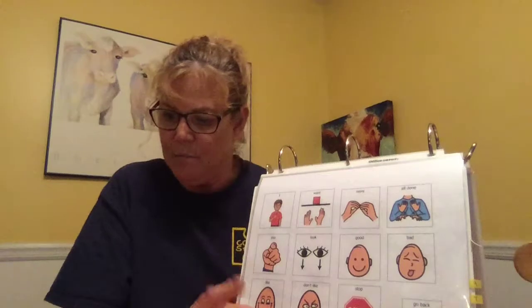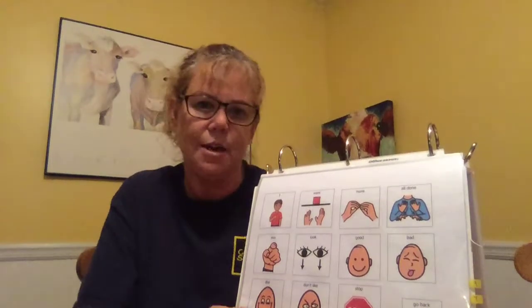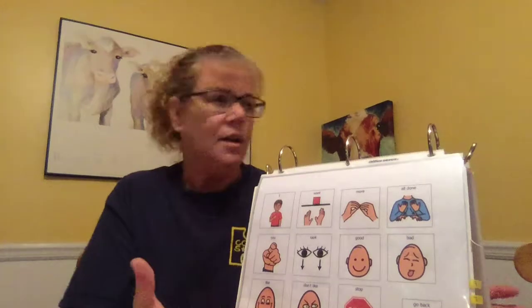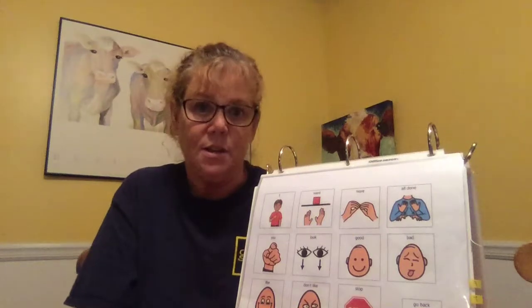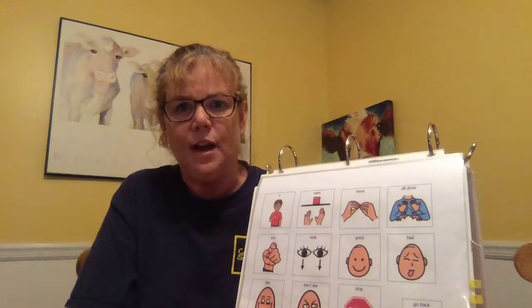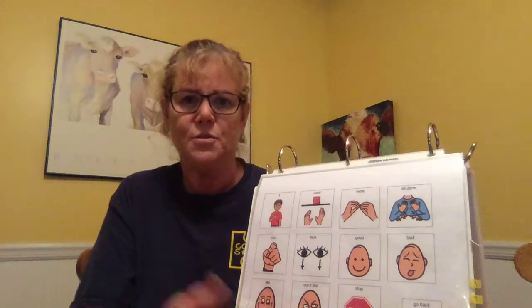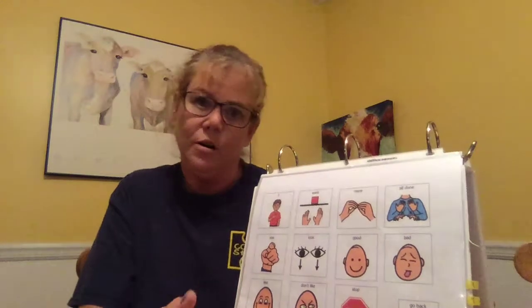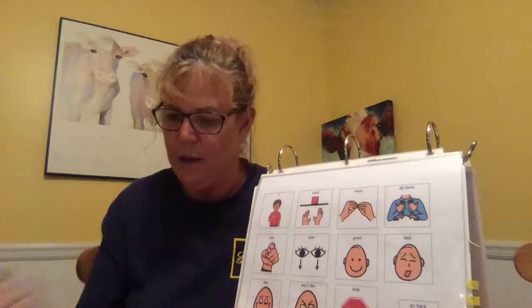John's previous system used a head switch. I inferred from this that he may have limited movement in his hands or not really be able to control his hand movement very well. So I thought the head turn and the head up would work for him because he seems to have head movement. And the information also said that John's previous head switch wasn't really in a good position for him based on his PT goals. So I think the more natural movement of the no and yes would be more aligned with PT goals and things that wouldn't be awkward for him.